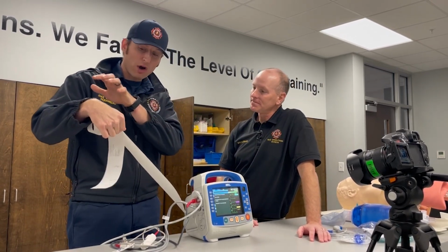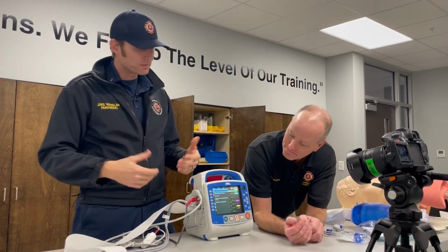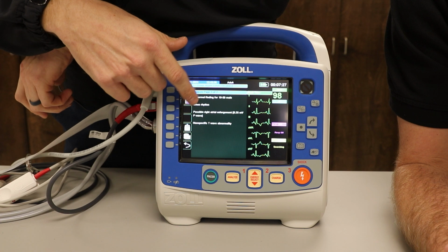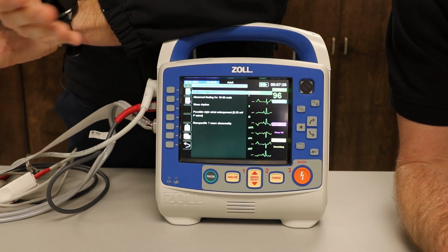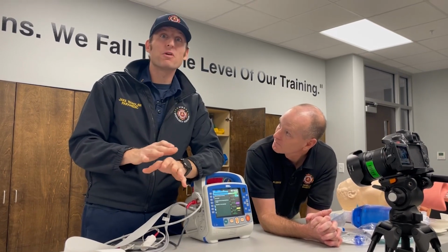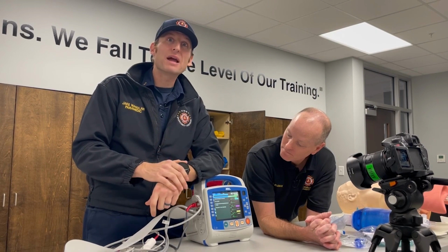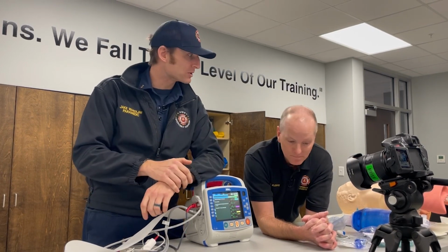I forgot about that. It's going to give all the information that this printout will give you on this screen, which is awesome. If you're looking at this side, it's giving you your diagnosis, based on the information that we input. It says, hey, this is the possibility of what it is. I will hyper-focus on the fact that it can be wrong. I wanted you to know that. From a BLS perspective, if it says STEMI, by all means, we can transmit it.